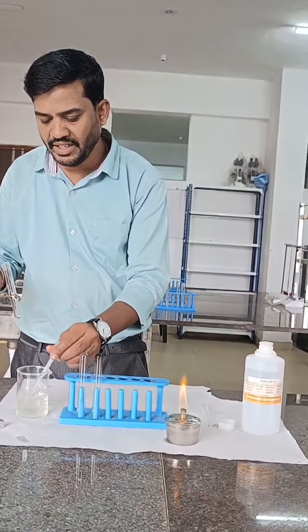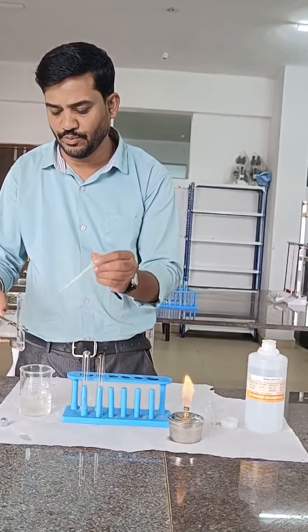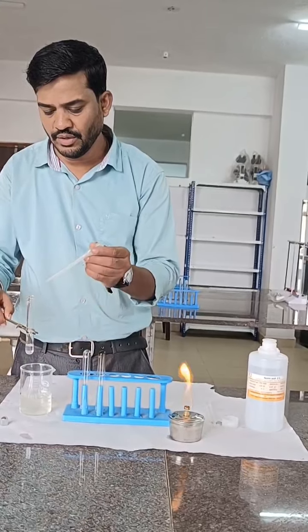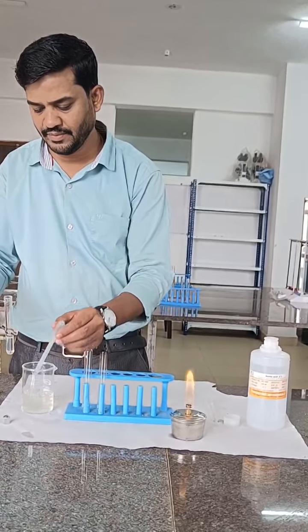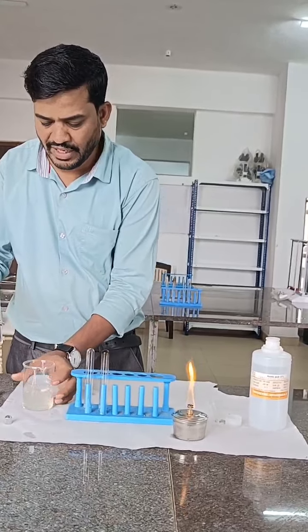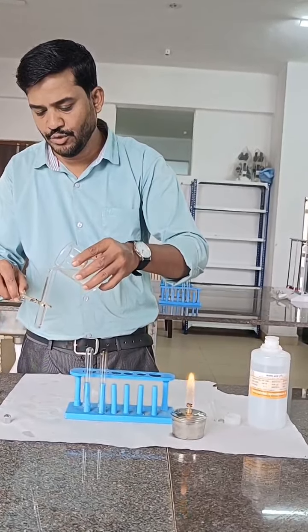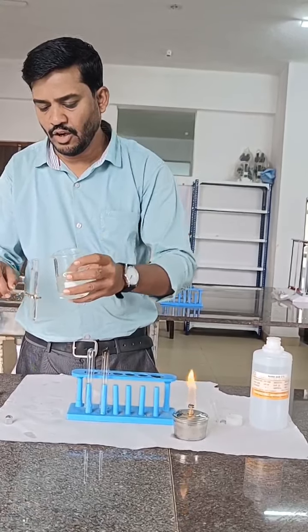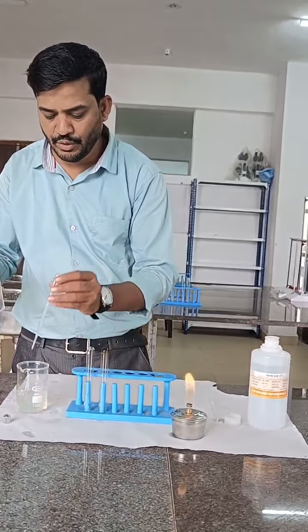First we have to take three-fourths volume of urine in a test tube. Now I am adding three-fourths volume of urine in a test tube.